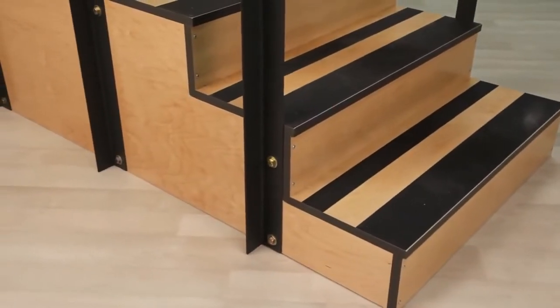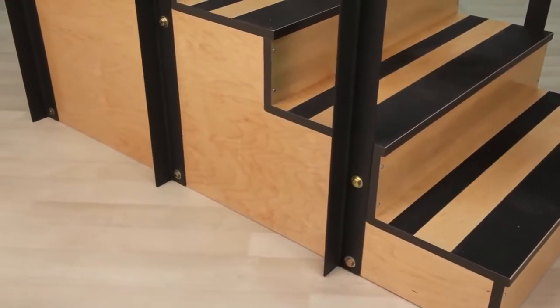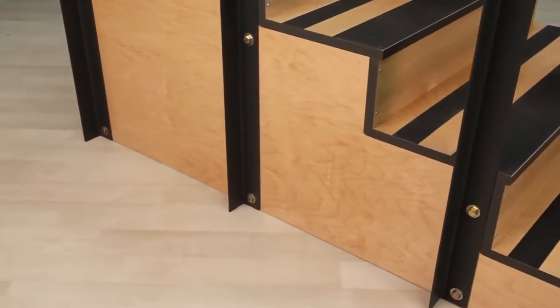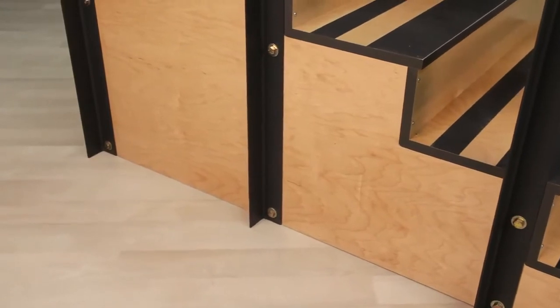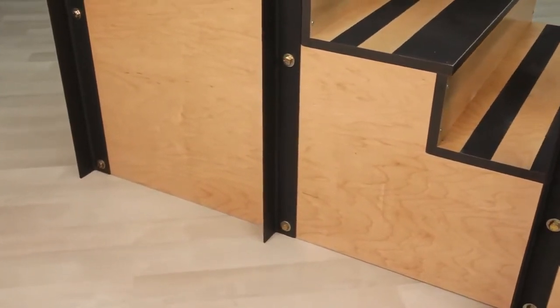The stairs and bases of all Clinton staircases are three-quarter-inch thick all-plywood construction, coated with a tough UV-cured finish and fastened with steel fasteners, not wooden dowels.